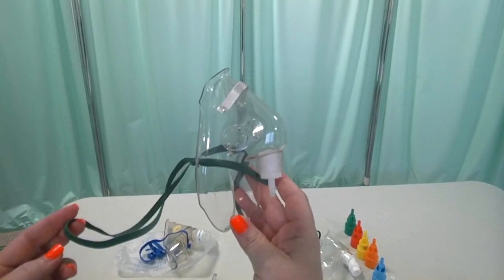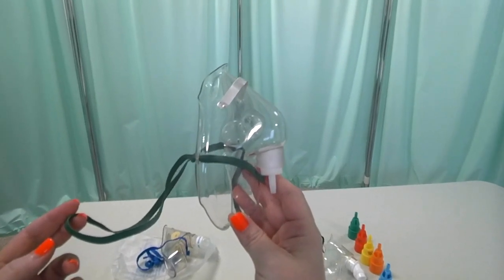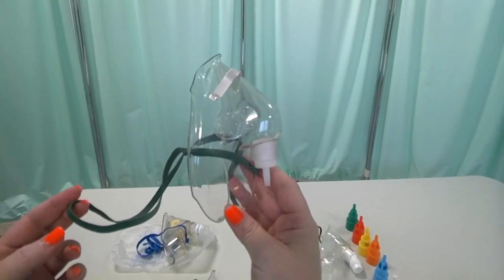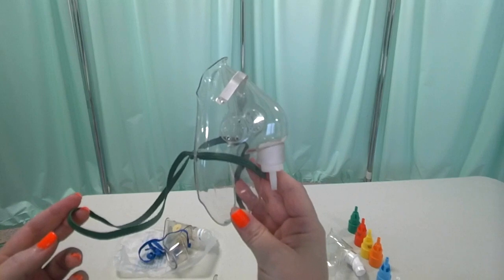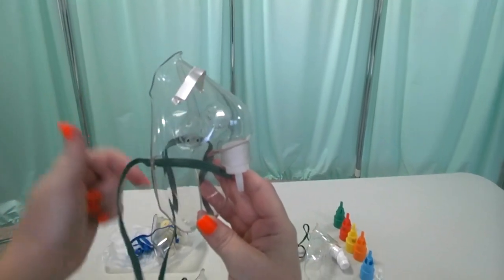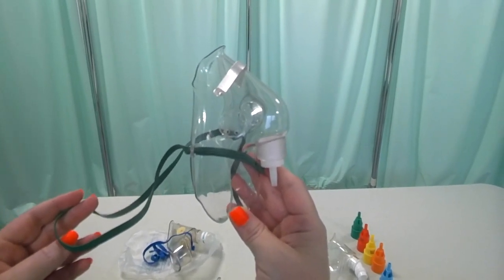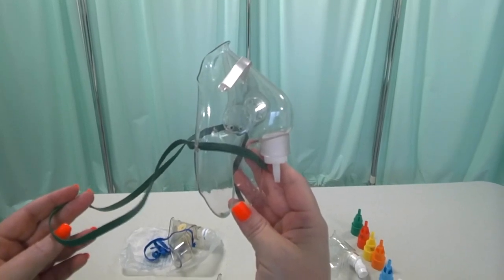The flow rate for this particular device at its lower end is about 5 to 6 liters per minute. We don't want to go any lower than that, because at a flow rate lower than 5 liters per minute, we are not generating enough pressure within the space of this mask to avoid the re-breathing of the patient's own CO2 gases. So at 5 liters and above, we're safe.